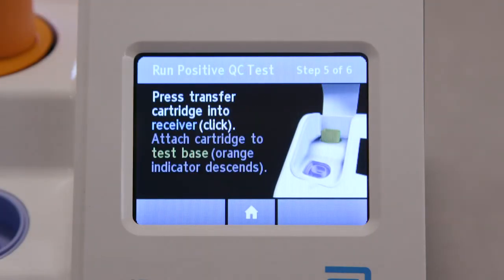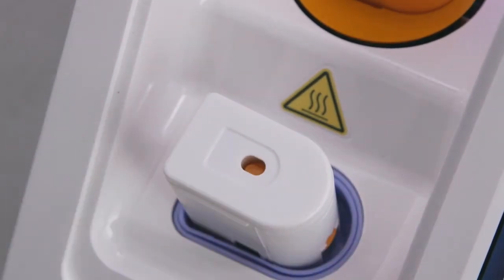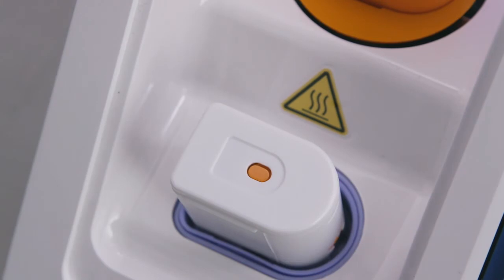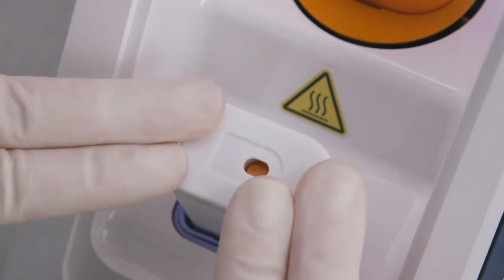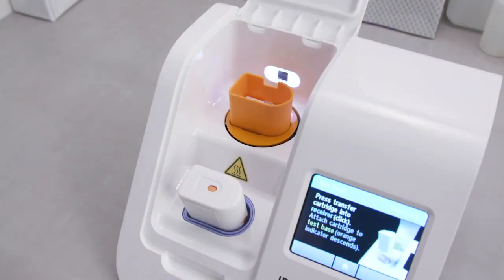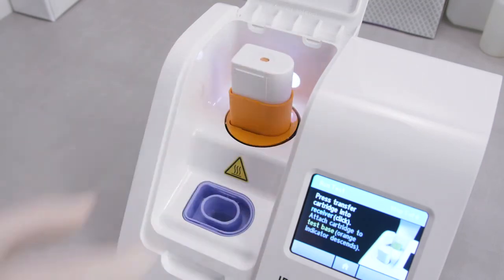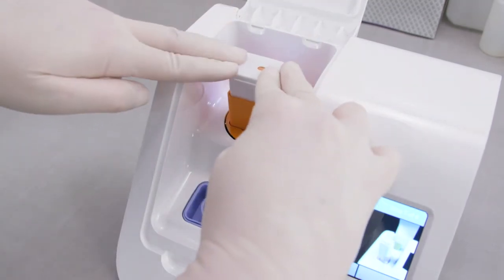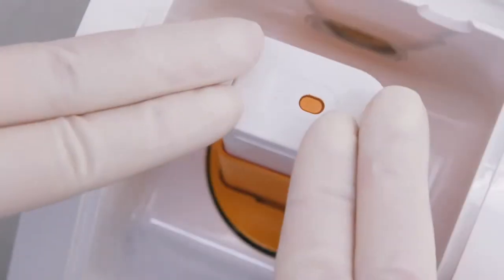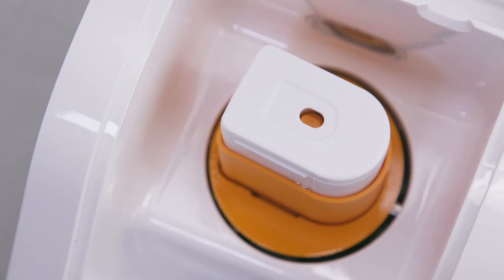When prompted, using both hands, press the white transfer cartridge into the blue sample receiver until a click is heard. Observe that the orange indicator rises to the top of the transfer cartridge. Lift and connect the transfer cartridge to the test base by pressing down. When the transfer cartridge is properly attached to the test base, the orange indicator will descend to its starting position.